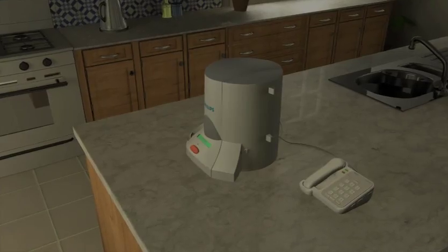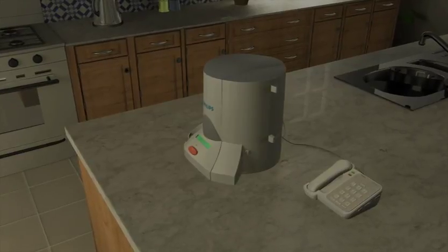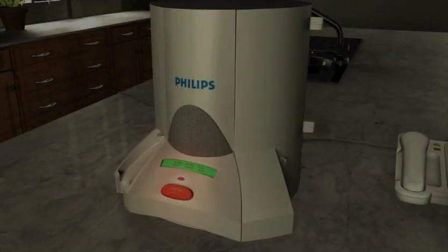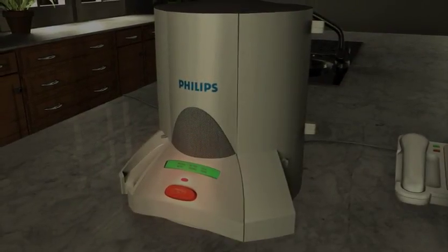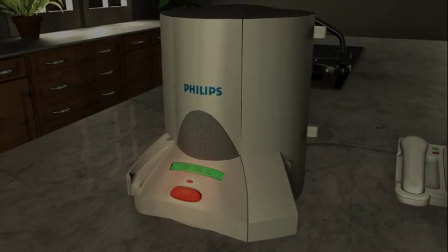In addition, the medication dispensing service will automatically alert the caregiver of a power outage. Your patient's electricity is out. A feature especially helpful during very hot or very cold weather.